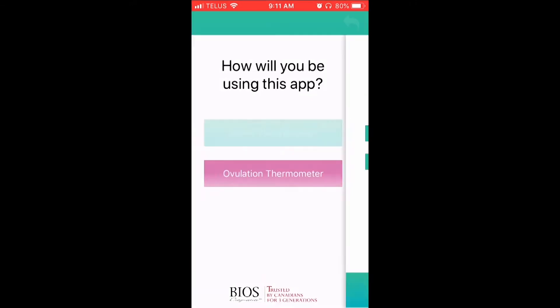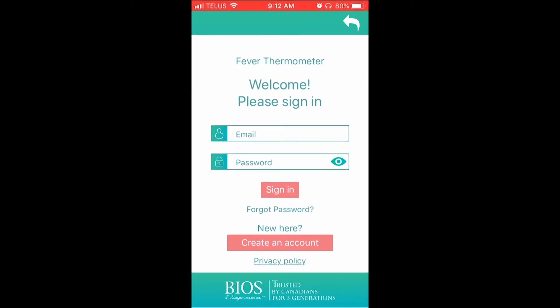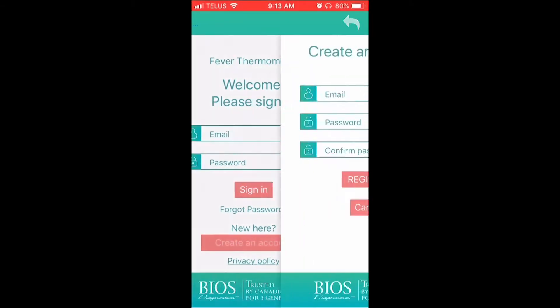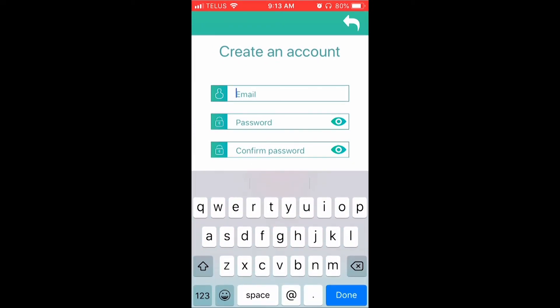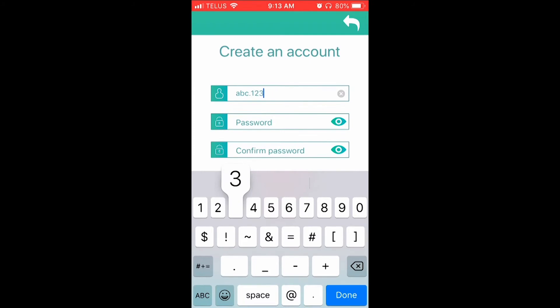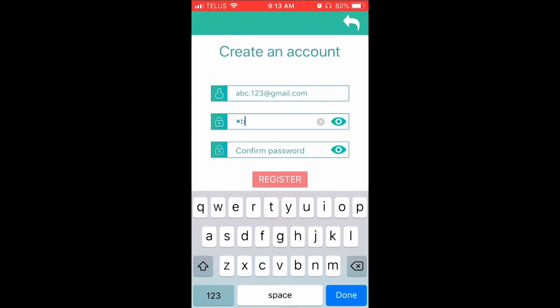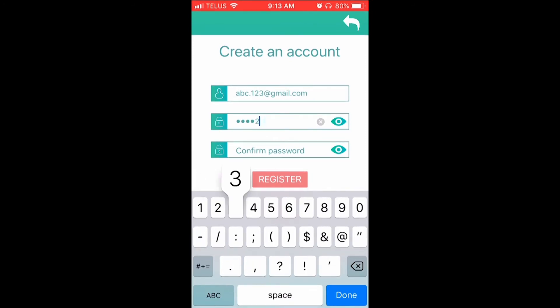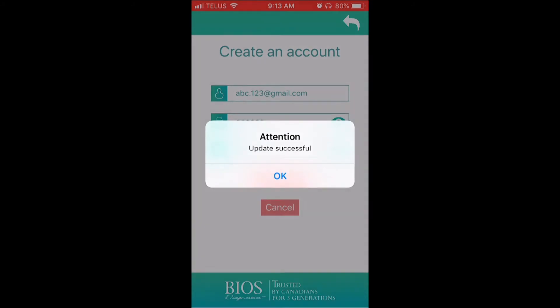Once the app has been launched, you will be prompted to log in. You will now have to create an account. To do so, click the Create Account button on the screen, enter an email address that you use on a regular basis followed by a password of your choice. Make sure the password you choose is one you will remember as you will have to use it in the future. Confirm your information by clicking on the Register button.